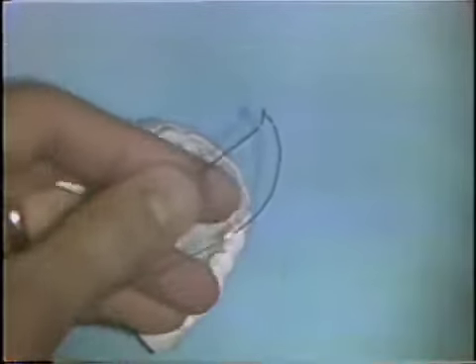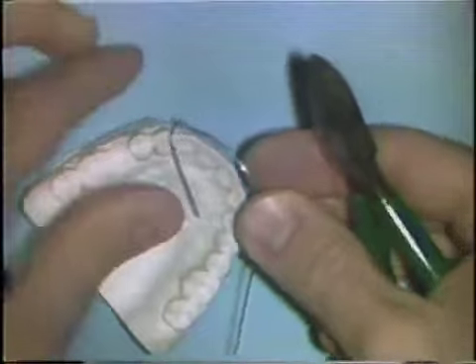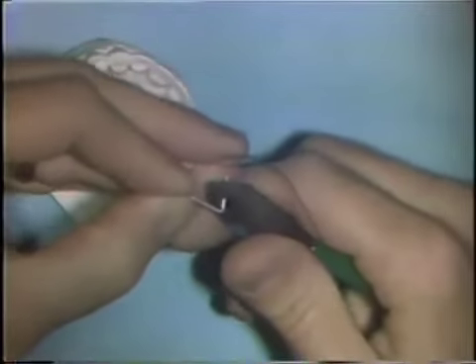You complete this bend with the plier and cut off some excess wire that's extending down into the palate. You adapt the wire to lie about a millimeter off the palatal tissues with a series of small bends. This is the section of wire that embeds in acrylic. The extension into the palatal acrylic doesn't need to be too long — about half an inch to three quarters of an inch is fine. A small loop or curvature is bent into the end of the wire that extends into the acrylic to aid retention.